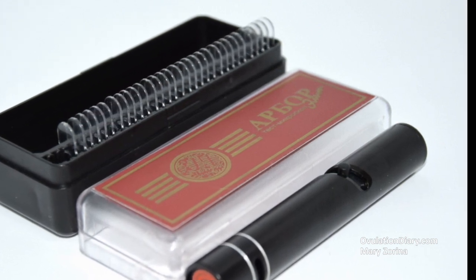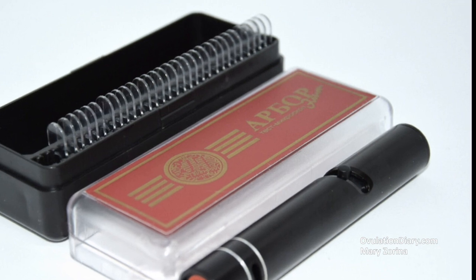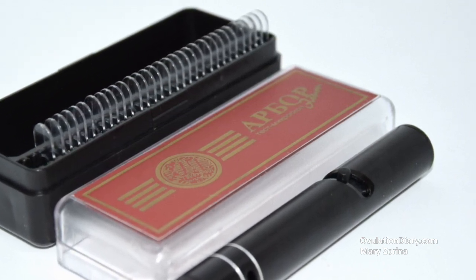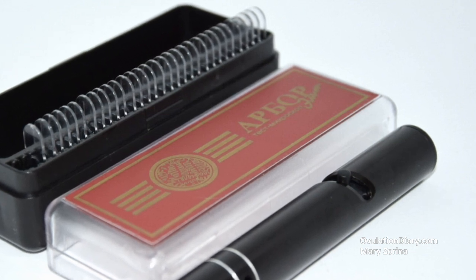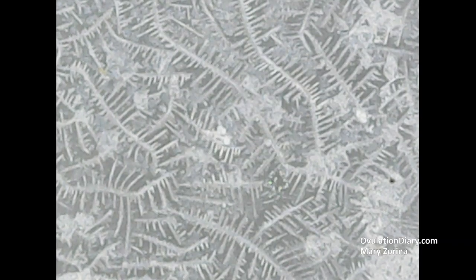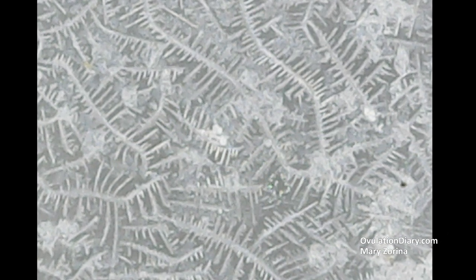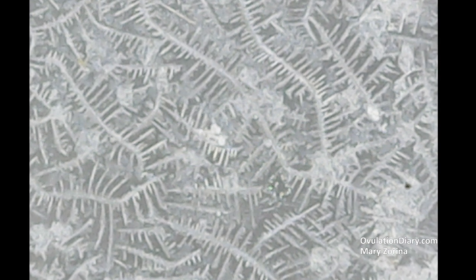The essence of the test is to take a sample of pure saliva daily so that it naturally dries within 15–30 minutes. After that, in a special microscope at an increase of about 50–100 times, it will be possible to see the formed crystals. The more estrogen in the biomaterial, the greater the effect of fern.